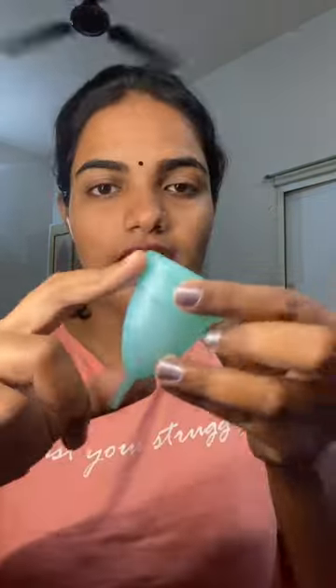Second one: not knowing how to fit it. If you don't know how to fit it correctly, you won't be able to make it correct. You will need to fit it properly. This is the correct position.